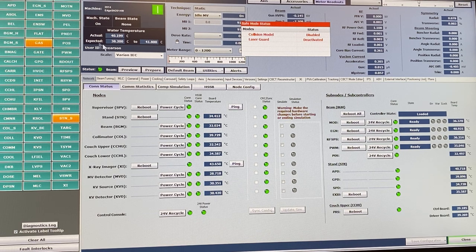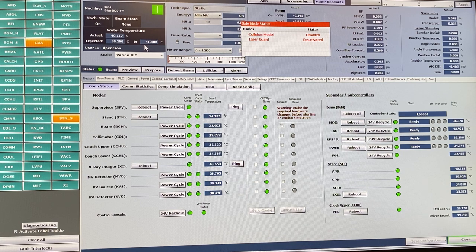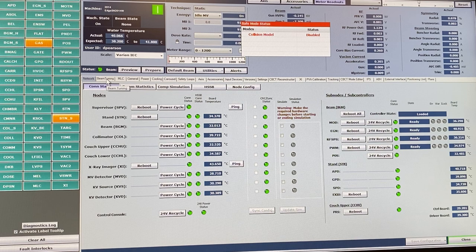Another thing commonly used on this screen is checking the water temperature. If the machine has been shut down completely, the water inside can be over-cooled and the temperature can drop below 38.2°C, putting the machine in a time-delay situation where the beam won't run. You might see an under-temperature issue if the machine has been shut off for a while with the power completely down, though over-temperature issues are less likely unless you're doing annual QA.